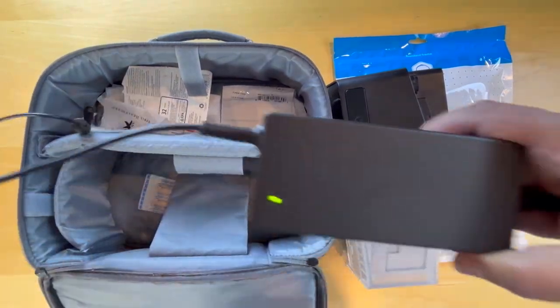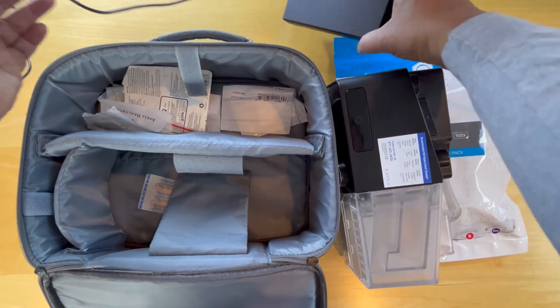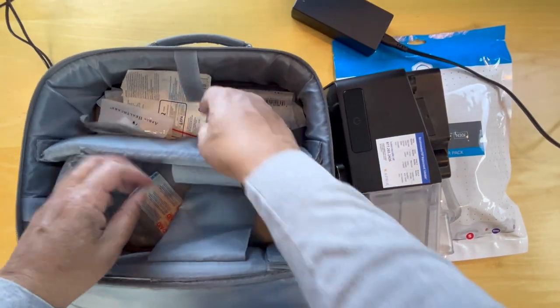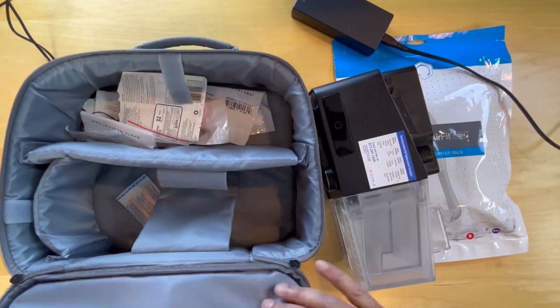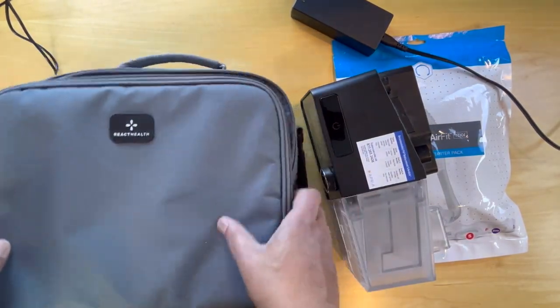So that's plugged in. We'll leave it here. And then there are some filters and some other pieces in here. We'll put this away.